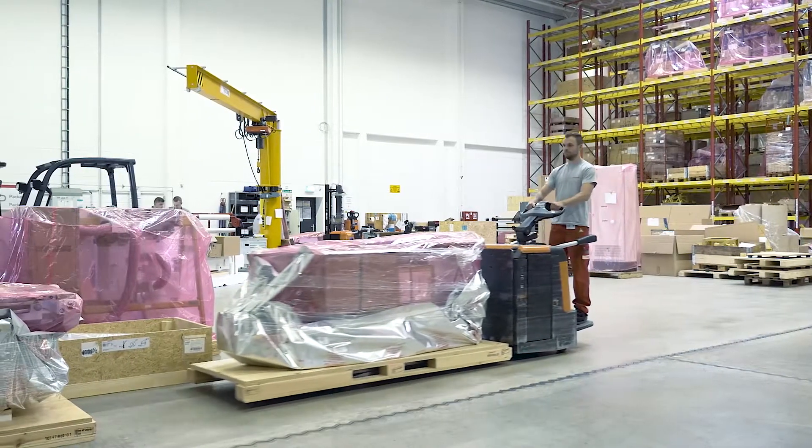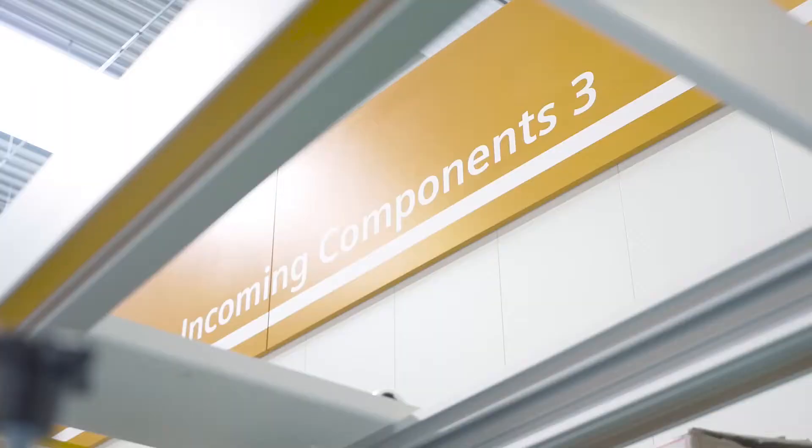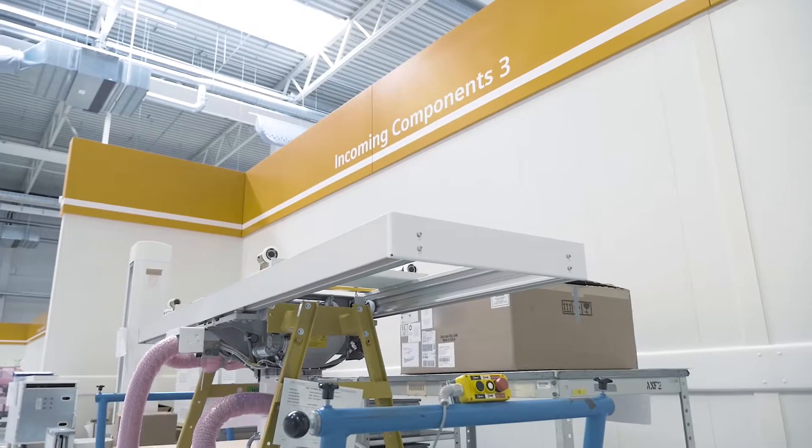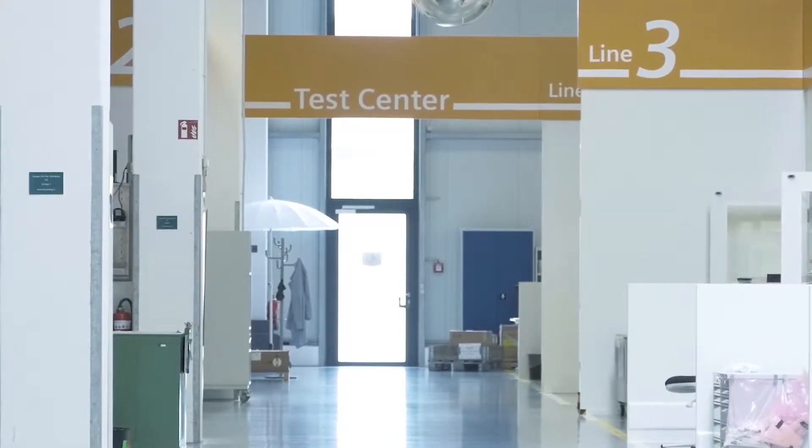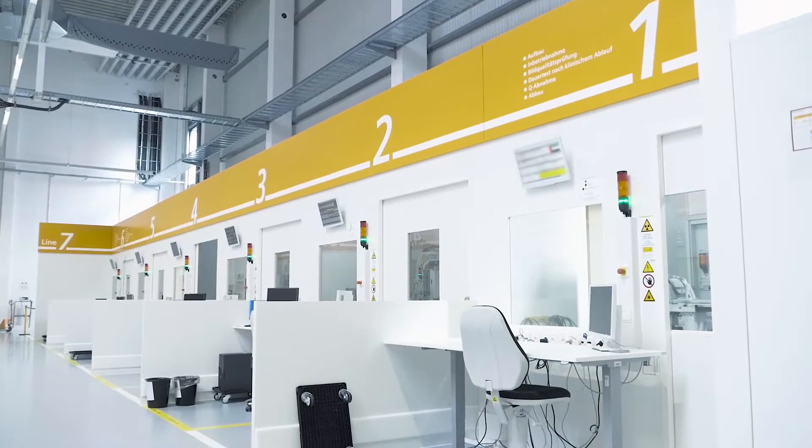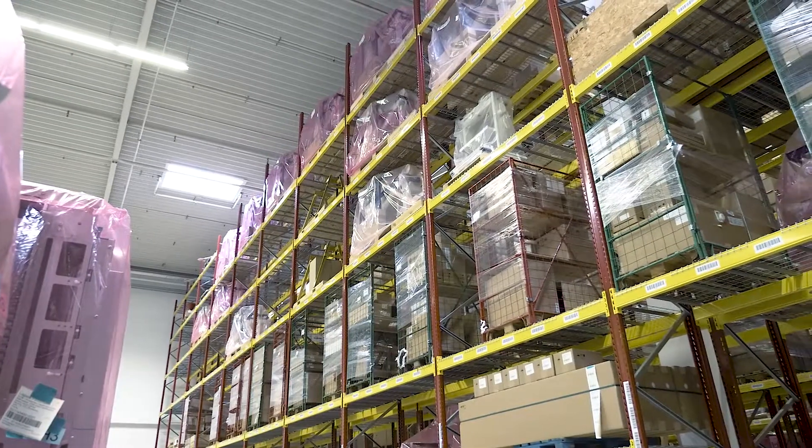Despite the time-consuming tests, we achieve extremely short throughput times here. Multix Fusion Max usually leaves the factory just 4 weeks after order receipt here in the factory, at which point we hand over responsibility for it to the local project management team. When it comes to quality, we do not compromise.